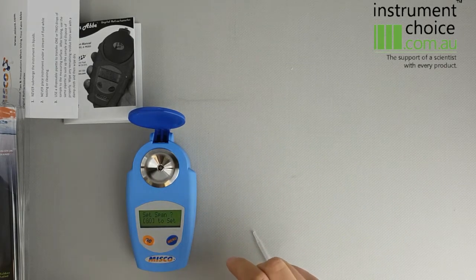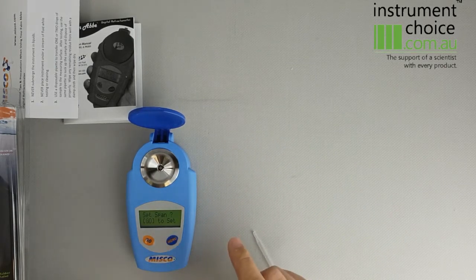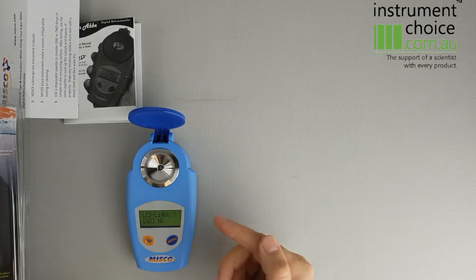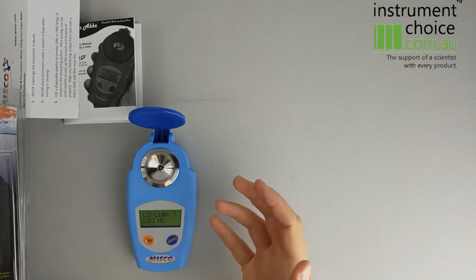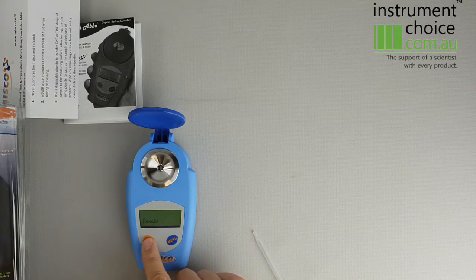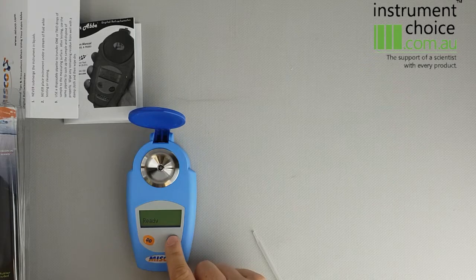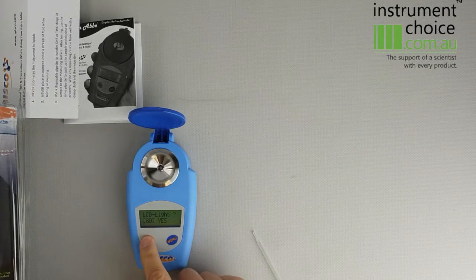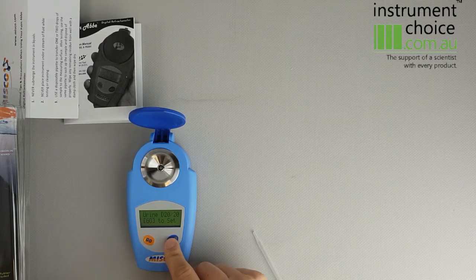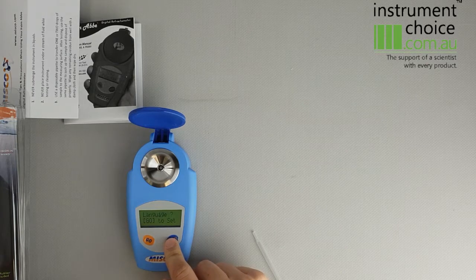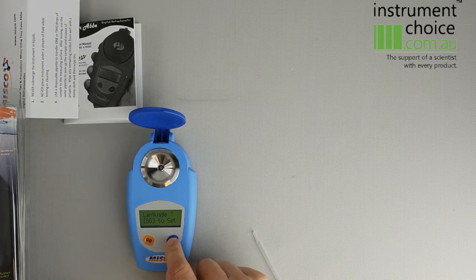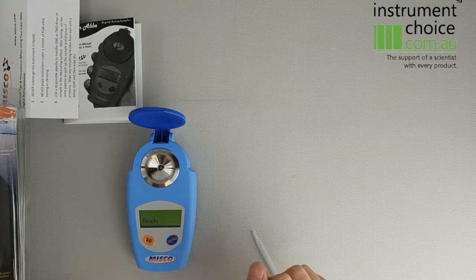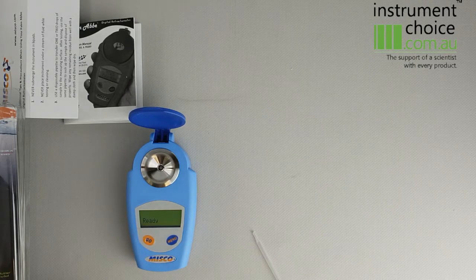The other menus aren't too relevant. You can turn your LCD light on or off. I prefer to leave it on just to give you a bit more lighting. You can also change the language if required. In general, most of us obviously will be using English.